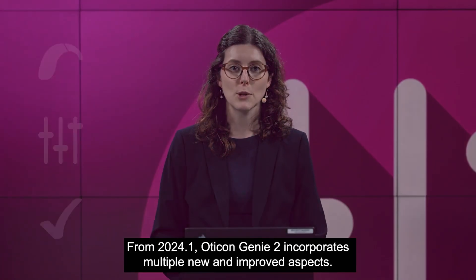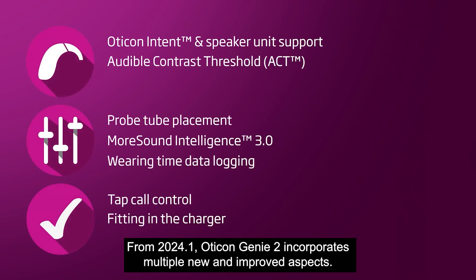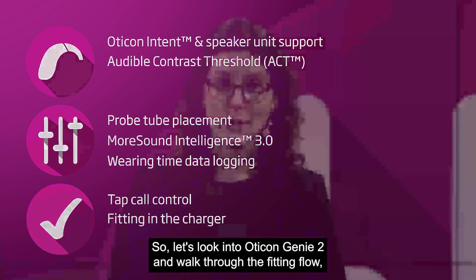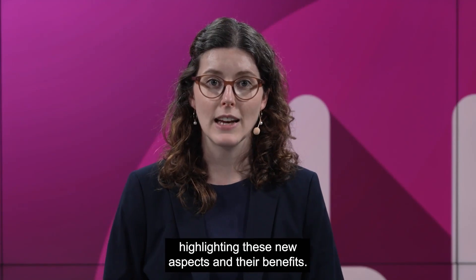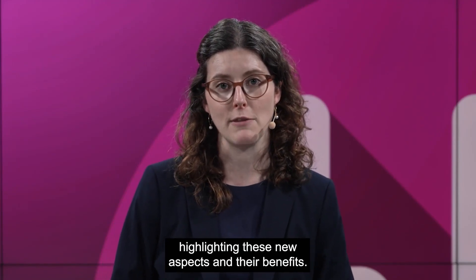From 2024.1, Oticon Genie 2 incorporates multiple new and improved aspects. So let's look into Oticon Genie 2 and walk through the fitting flow, highlighting these new aspects and their benefits.